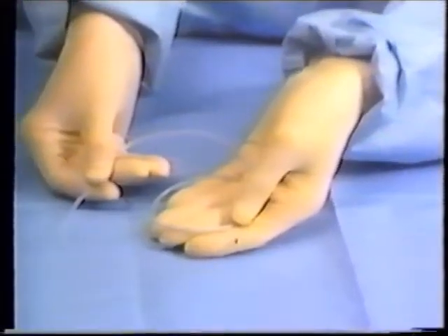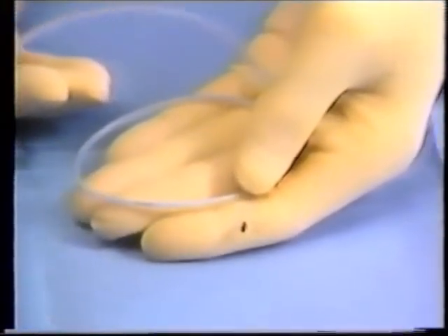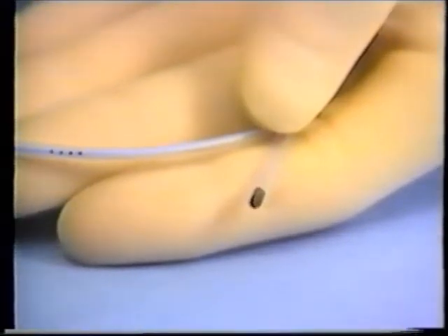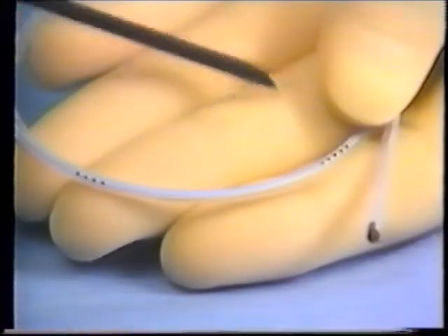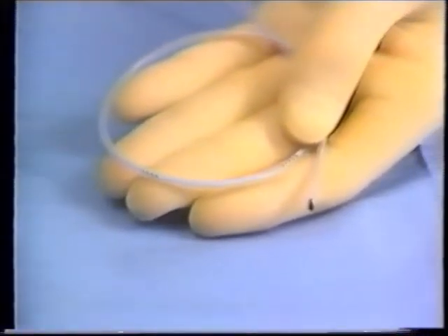The valve remains closed between a range of minus seven to plus 80 millimeters of mercury. The Groshong eight French port catheter is constructed of radiopaque silicone rubber and has a rounded tip designed to reduce the risk of vessel erosion and/or cardiac tamponade. Depth markings make insertion easier. The catheter can be cut to length, and the thin wall design provides for high flow rates.